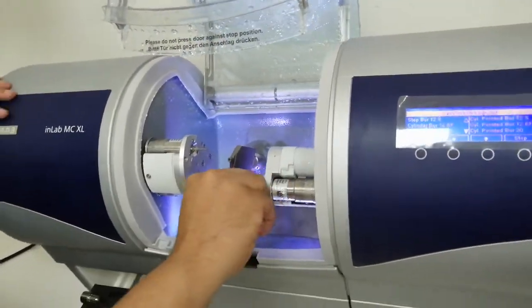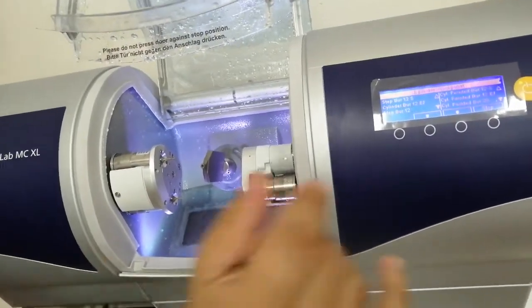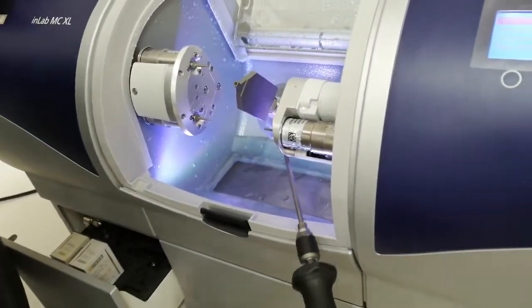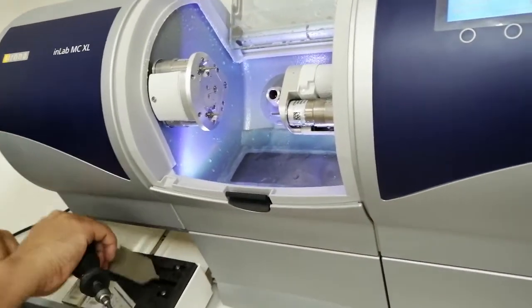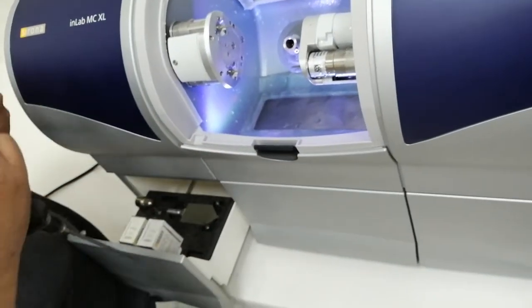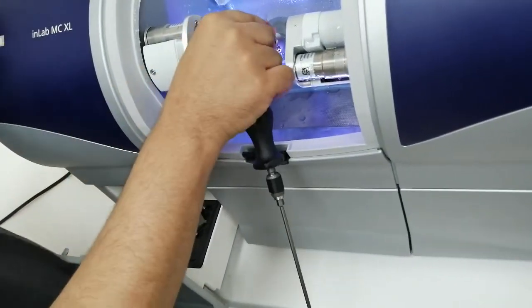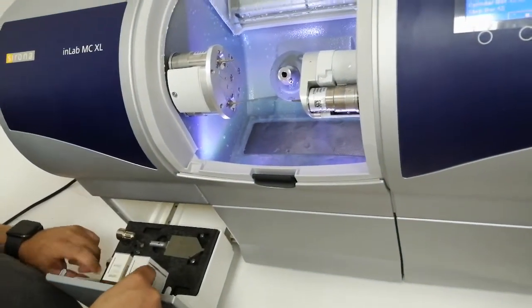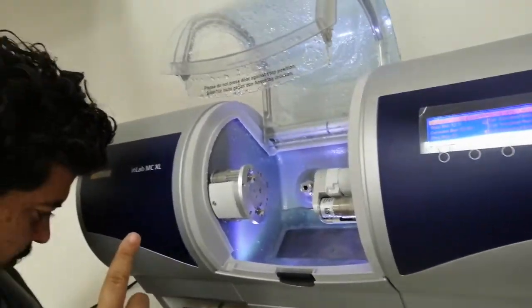So you will give training to the user, to the doctor? Yes, sure. Then remove the center calibration phantom. Put it here. Also put this one. See this one in front of the screw here? First we have the spare screw here. The latest ones have two pointed steps.